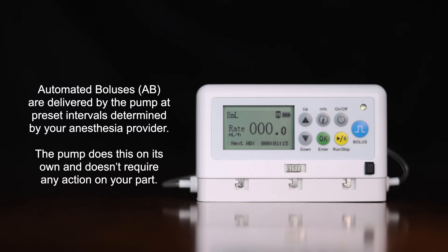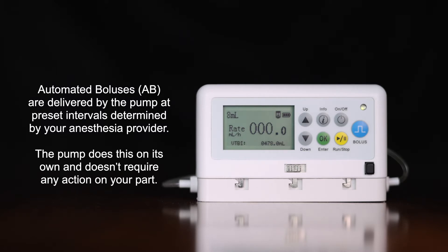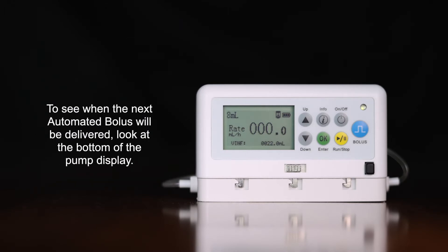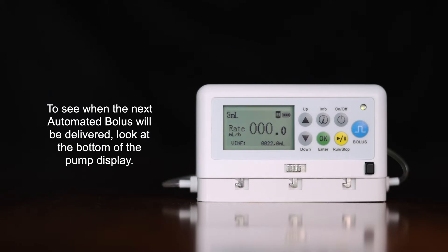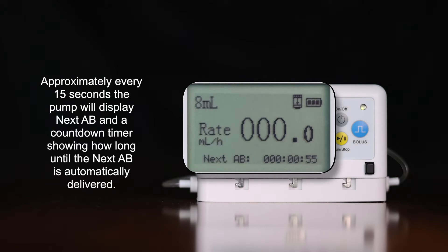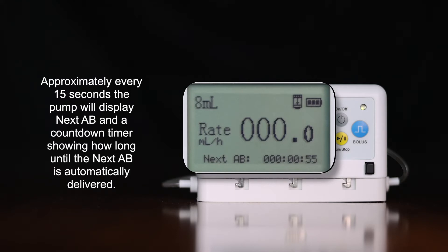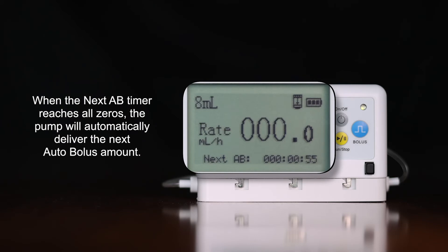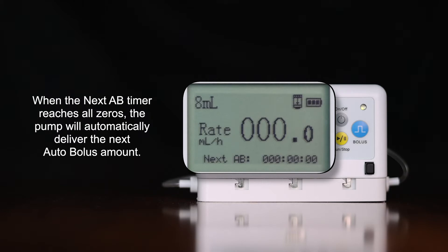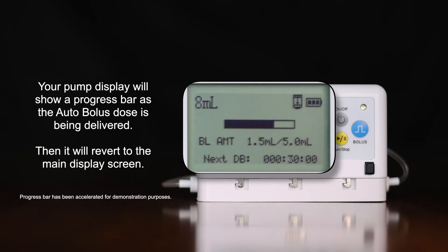Automated boluses (AB) are automatically delivered by the pump at preset intervals determined by your anesthesia provider. The pump does this on its own and doesn't require any action on your part. To see when the next automated bolus will be delivered, look at the bottom of the pump display — approximately every 15 seconds the pump will display 'Next AB' and a countdown timer showing how long until the next AB is automatically delivered.